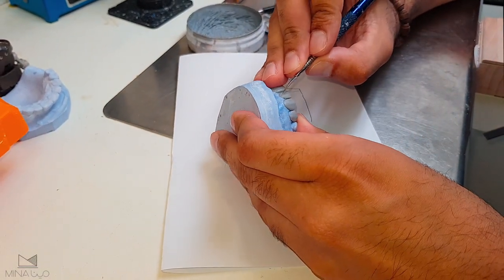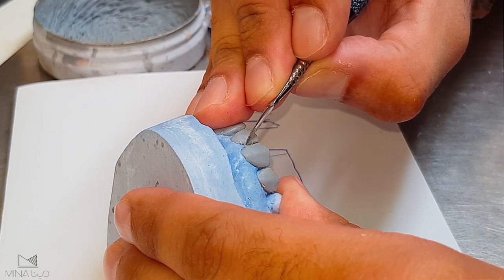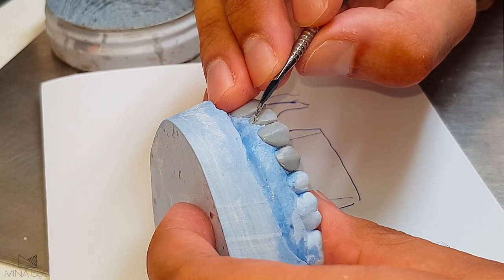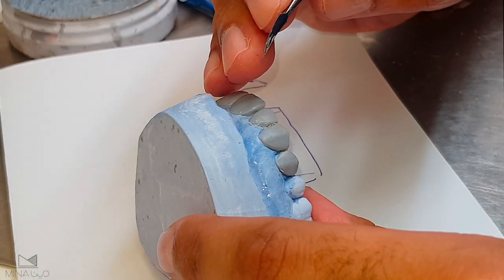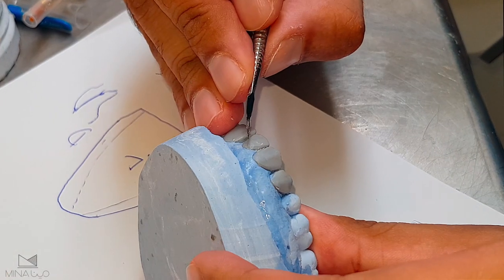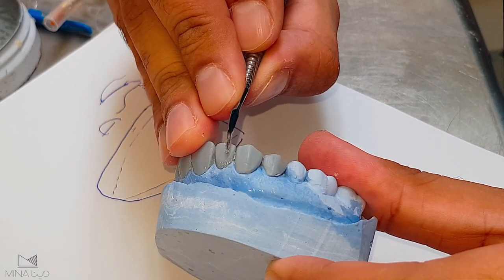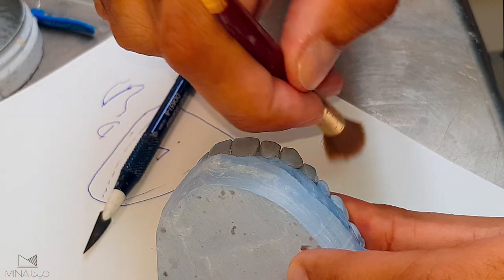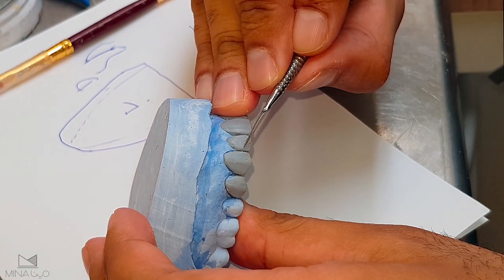What I'm doing here is basically trying to define the line angle between the distal part and the labial part. That's why when I hold my instrument, I define two surfaces at the same time. See this line — what I'm creating here is a line angle. Now of course I have to smoothen it and remove the excess wax.